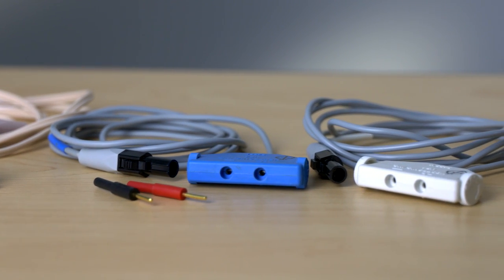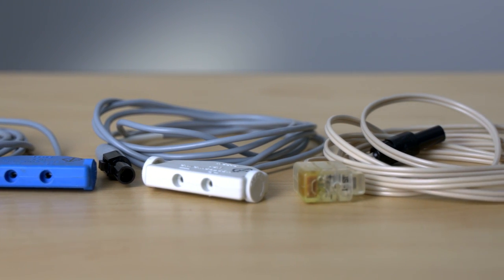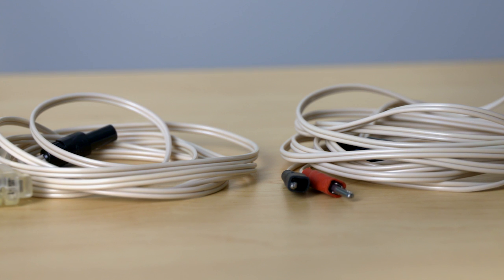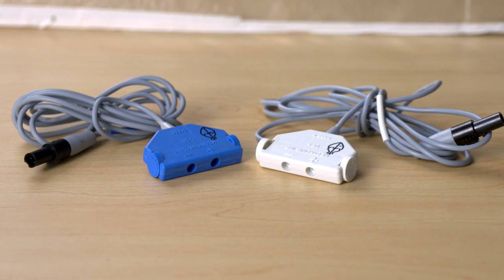There are various connectors on the cables that we'll discuss. There are also reusable cables and disposable cables. Disposable cables are for one-time use; reusable cables can be cleaned and reused. There's a really simple way to tell them apart: the disposable cables are beige in color and the reusable ones are gray.